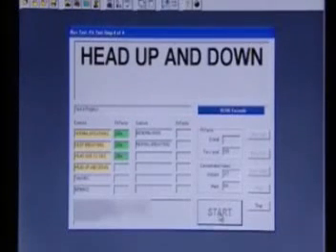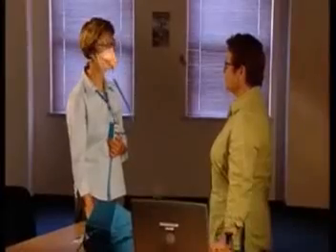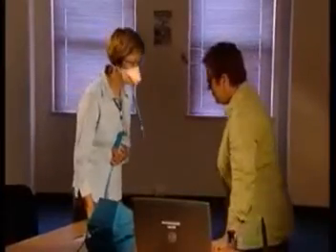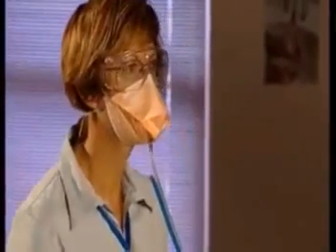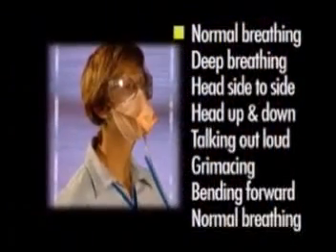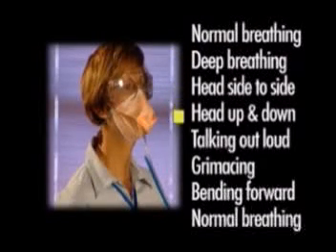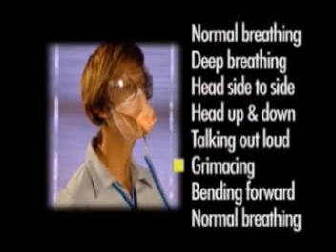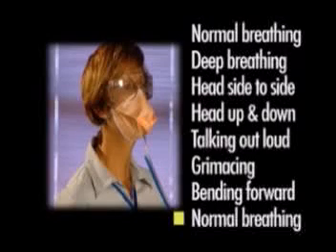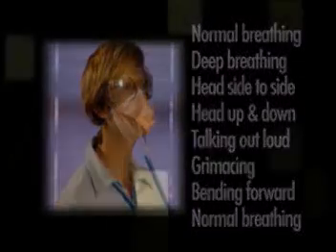Both the qualitative and quantitative methods require the person being tested to perform a standard set of activities. While this is being done, the fit-tester or fit-testing instrument assesses if there is any indication of leaks around the seal of the mask. There are a total of eight activities: normal breathing, deep breathing, head side to side, head up and down, talking out loud, grimacing, bending forward, and normal breathing. These simulate the facial movements and activities that may occur whilst performing normal duty.